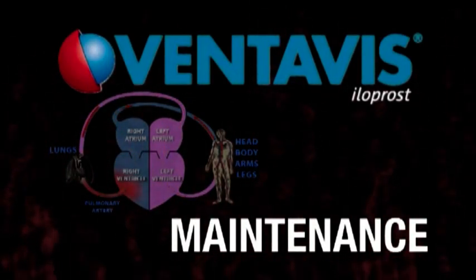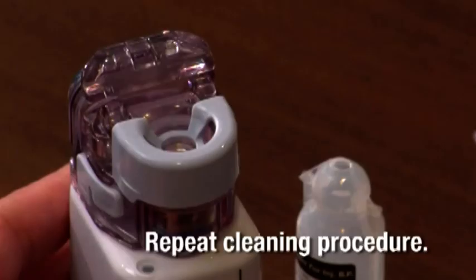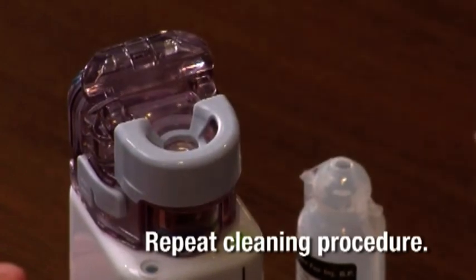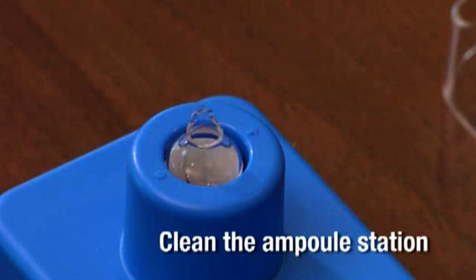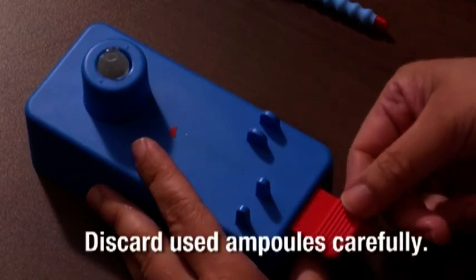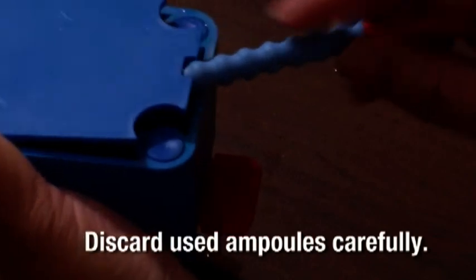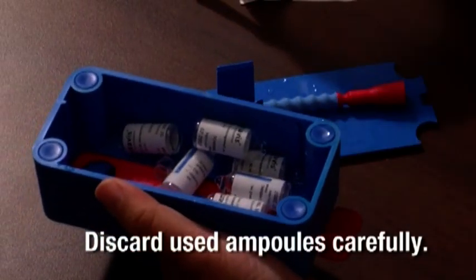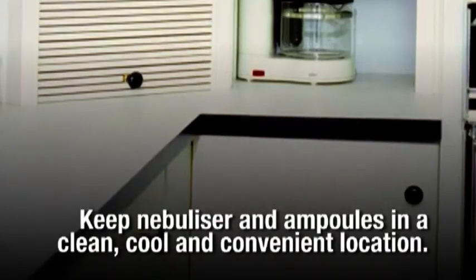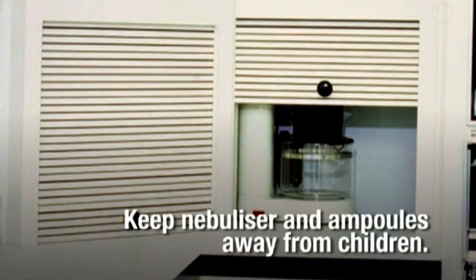There are two common reasons why your inhalation session gets longer: the batteries for the nebulizer are worn out and need to be changed, or the mesh cap has not been thoroughly cleaned — repeat the cleaning procedure for the mesh. It is important to ensure the ampoule station remains clean. Used ampoules must be discarded — place them into a bag and secure it before discarding. If your pharmacy provides them, use medicine disposal containers. Do not keep any leftover medicine for your next session. Keep the nebulizer and ampoules in a clean, cool, and convenient location, away from children.